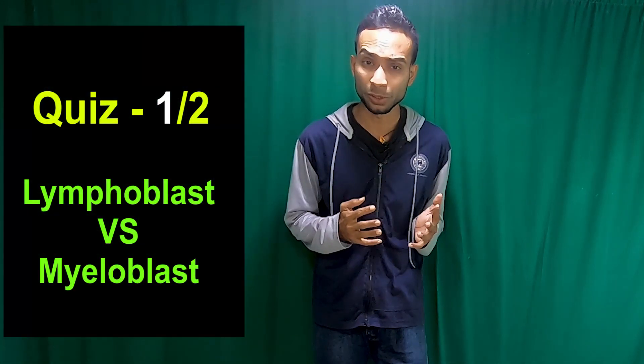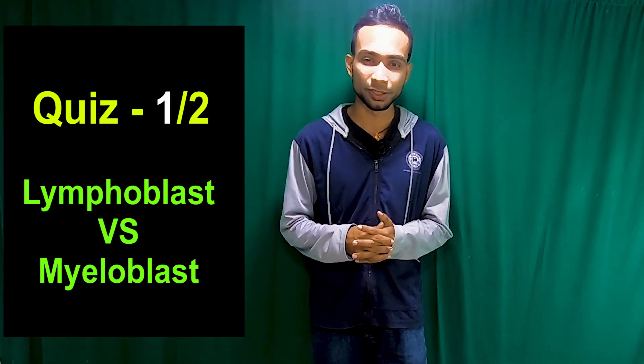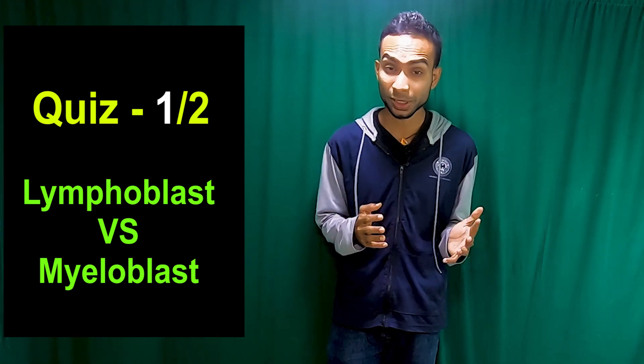So I decided to design two separate quiz videos to increase your cell identification skills. One video contains 25 slides, so both of our videos contain 50 slides. I'm pretty sure if you go through both of these videos, it will increase your cell identification skills. So let's start part 1.